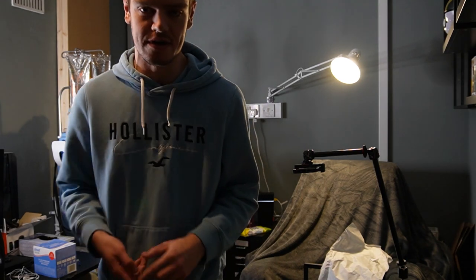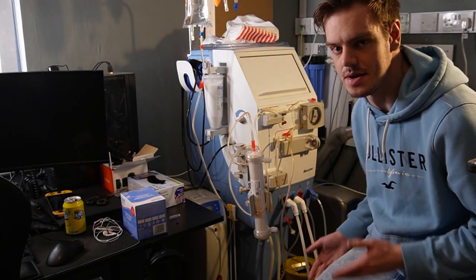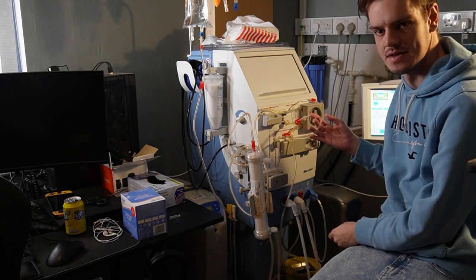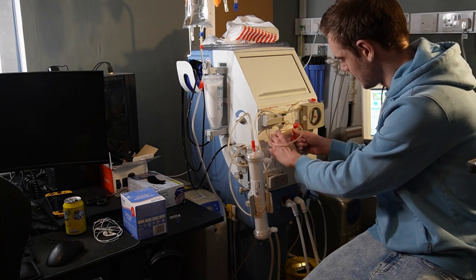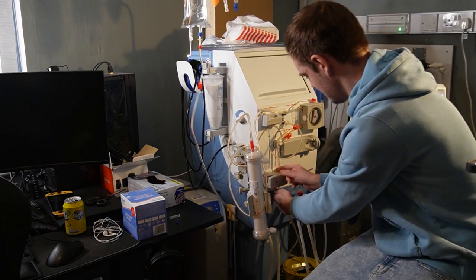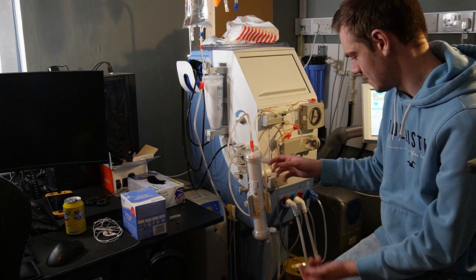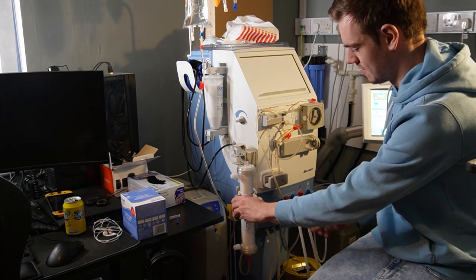I'll bring you guys a bit closer — might be able to see a bit better there. So this is what we've got so far — got the red attached. Then we get the bit with the round bit on the end, attached up there. That's our detector — that means if that goes towards that, there's too much pressure in the machine and it will cut off. So then we feed the tube down here, and this is the air detector — if any air goes through, the machine will cut off because we don't want any air in our system. And I think that is the red part done — so the red is on the bottom.